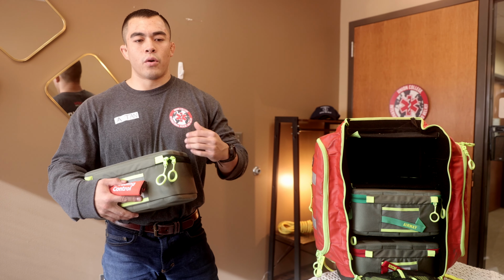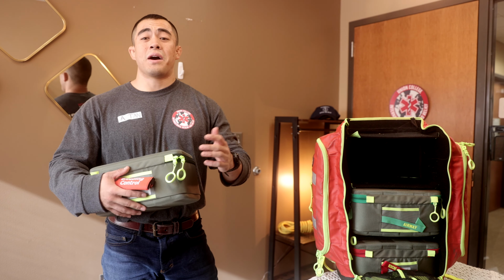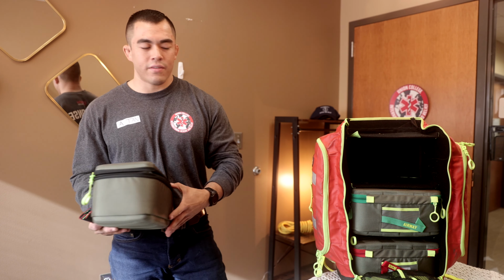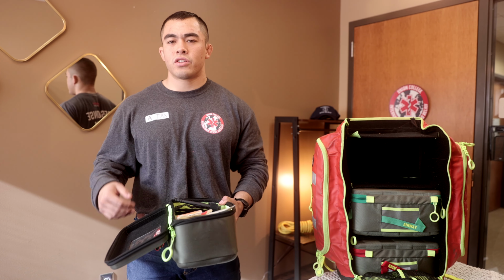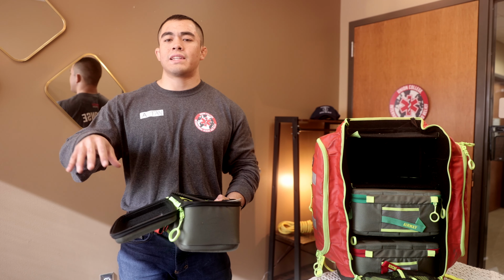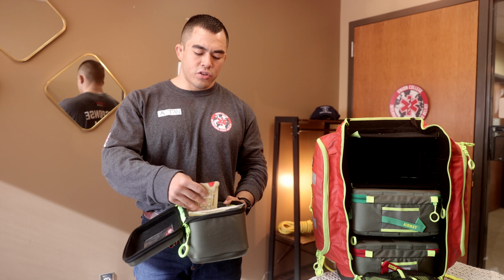With this, the big focus was tourniquets. We were using chainsaws and heavy objects to cut down trees and to help with, of course, the relief efforts. So with that, we had 2 tourniquets each. Typically, our medical staff assigned to our different teams would have one in their pockets as well, just for easier access. We have our chest seals.